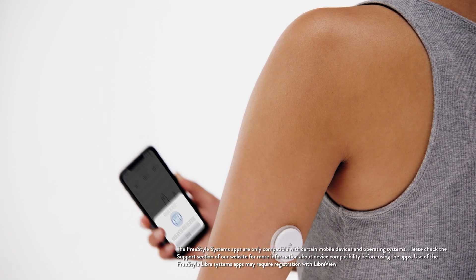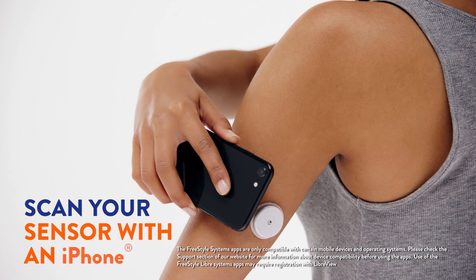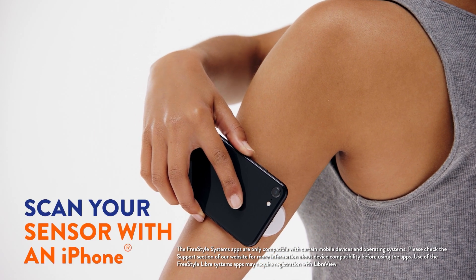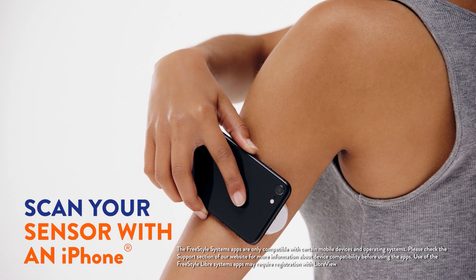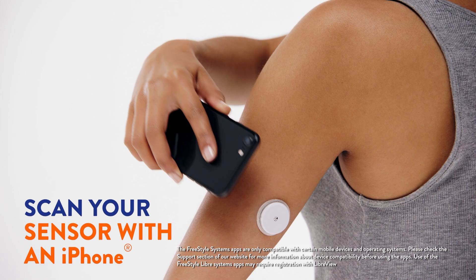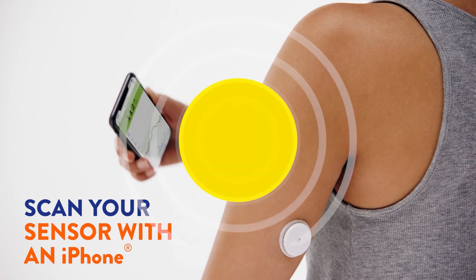For iPhones, hold the top edge of your iPhone near the sensor. Do not move your iPhone until you hear a tone and/or feel a vibration, which indicates the scan is complete.